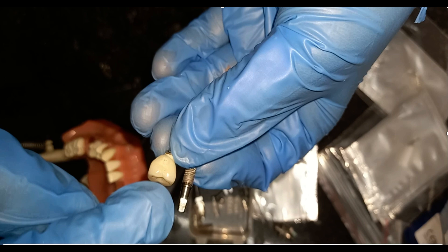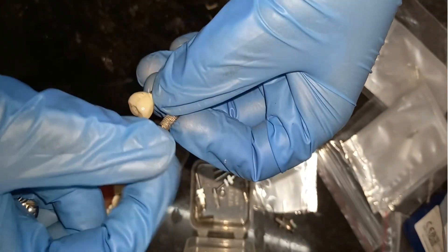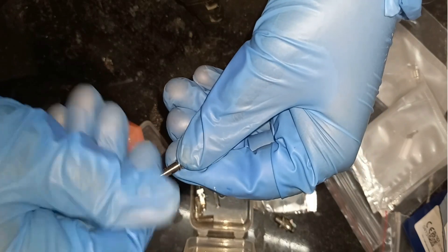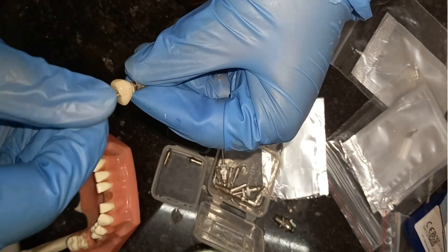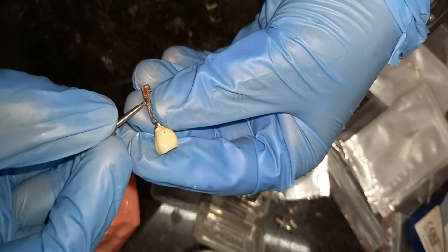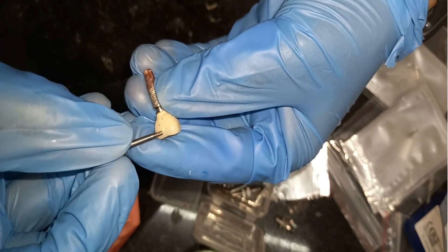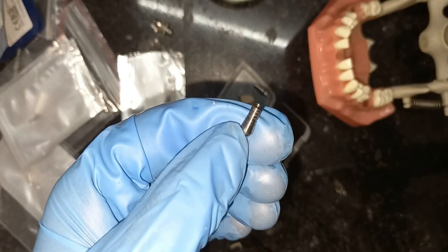In screw retained prosthesis, the abutment and prosthesis are a single unit — they are not different. First we unscrew the prefabricated abutment, and then screw the screw retained prosthesis over the implant. As you can see, the abutment is in between the implant and the prosthesis — it is a connecting link between the prosthesis and the implant.